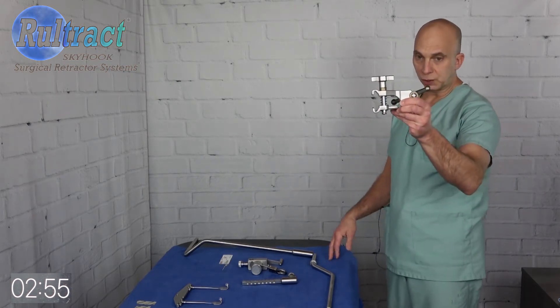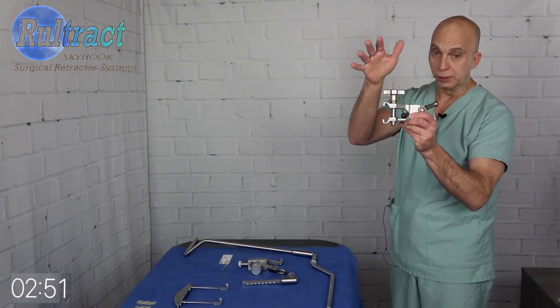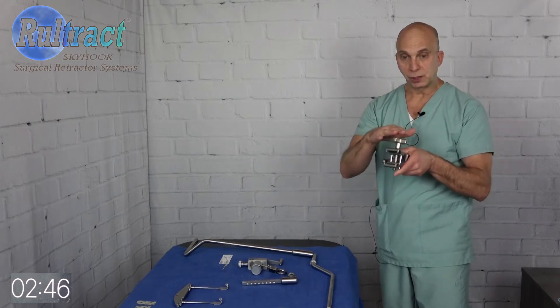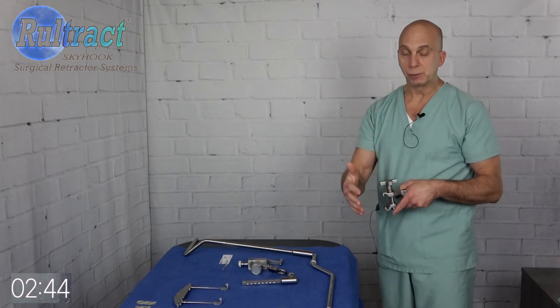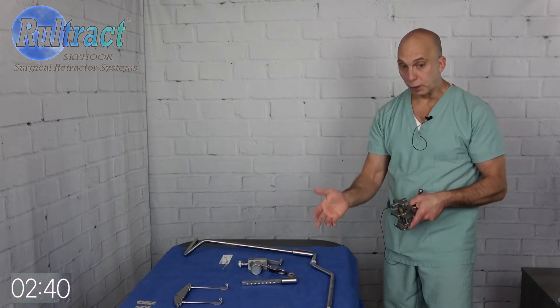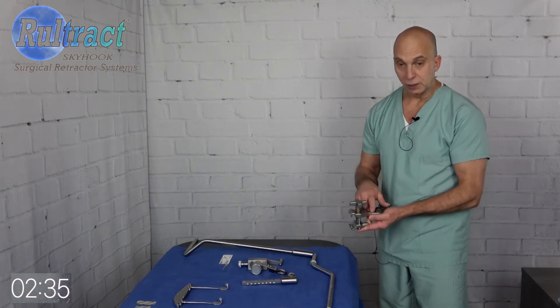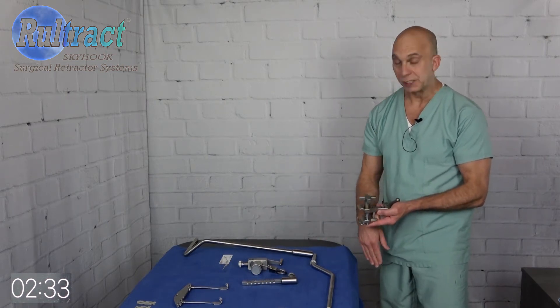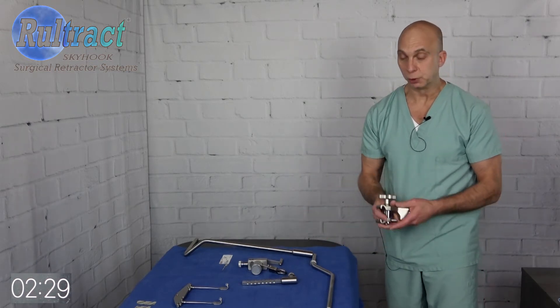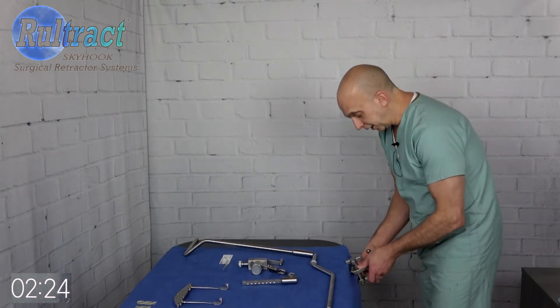You can see the difference here is this clamp is just a clamp — it doesn't have the post welded to it, so it is a little bit different. What you're going to do is go ahead and put this clamp on the bed at the same time that you would the clamp that you currently use. Or if you want to, you can put this on before the patient comes in the room like a stirrup holder, then cut a hole in the drape and put your post down into the drape when you're ready.